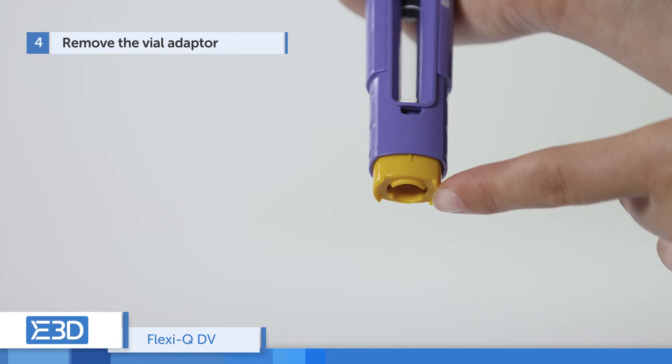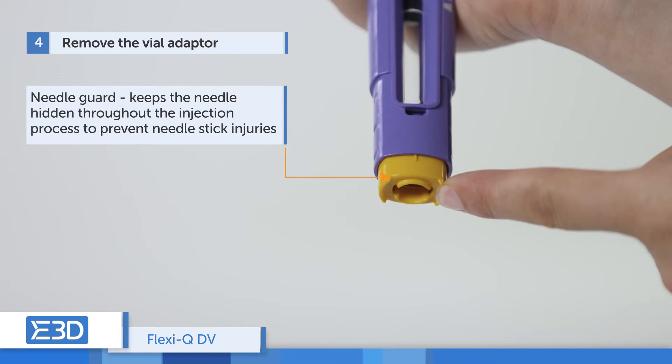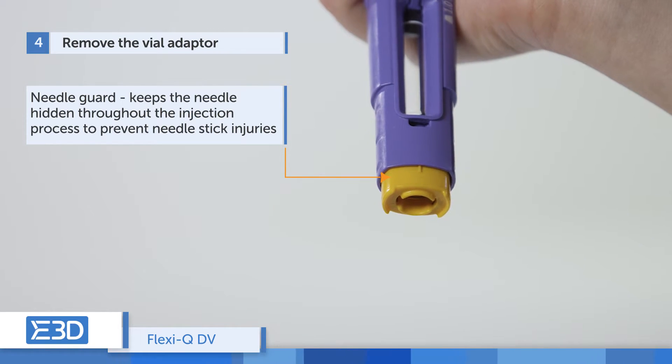The device is now ready to use. The needle guard hides the needle throughout the injection process and prevents needle stick injuries.